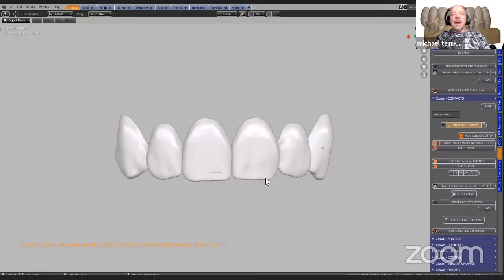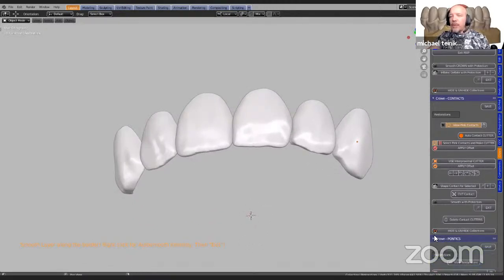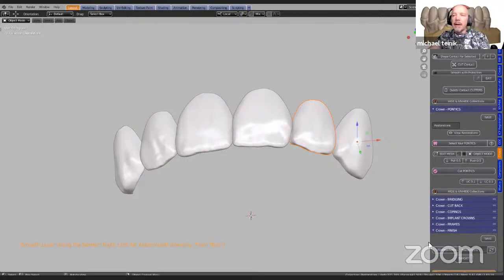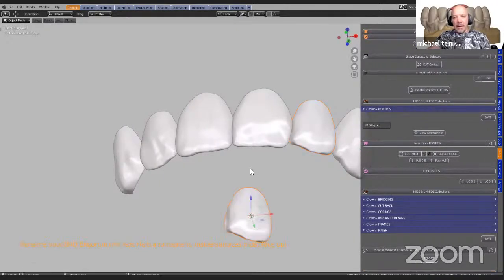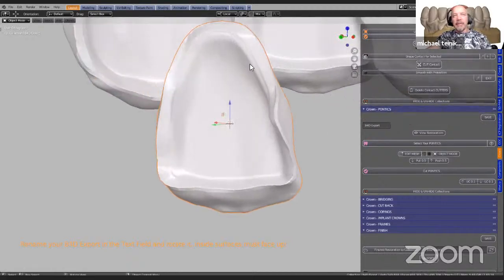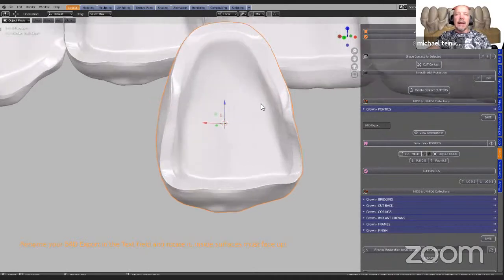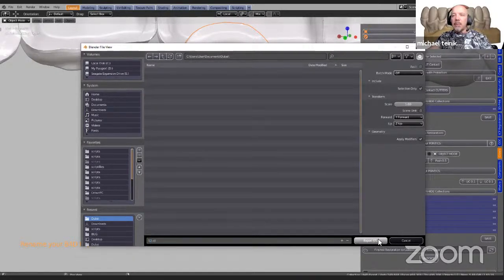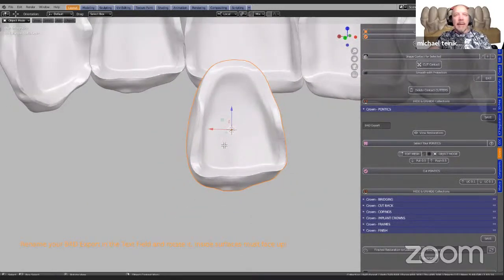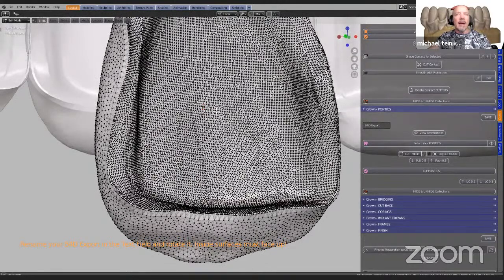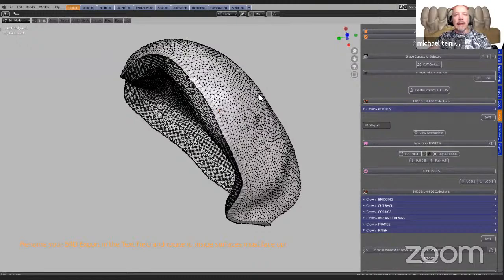So if we wanted to now export these for milling, we would select them individually. At the bottom of the menu where it says finish, we will take one after the other and click on this button here — finish restoration. It's going to put this into the center of Blender. We need this because it needs to be face up when loading it into the milling machines. Then we export this file, name it — tooth one, two, or whatever — and then export. And that's about it. The mesh structure looks like this — we've got a very nice, neat mesh structure. This is our support margin that we selected initially. And that completes the veneers.